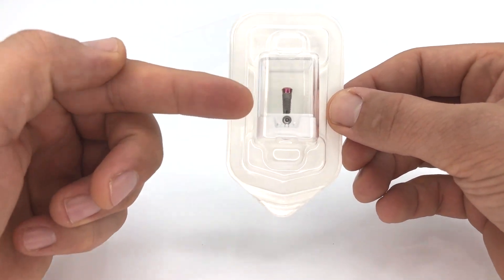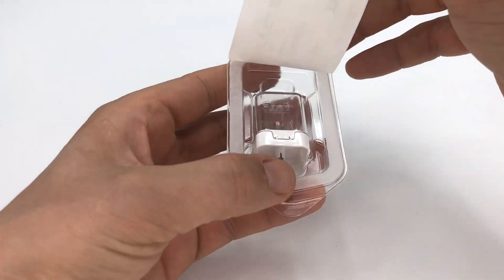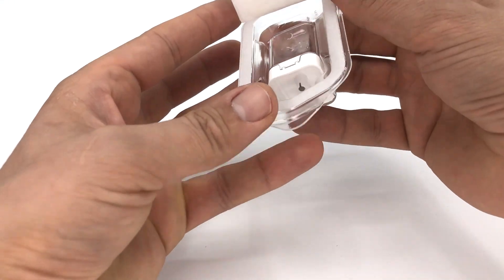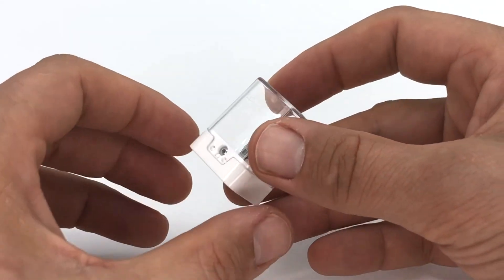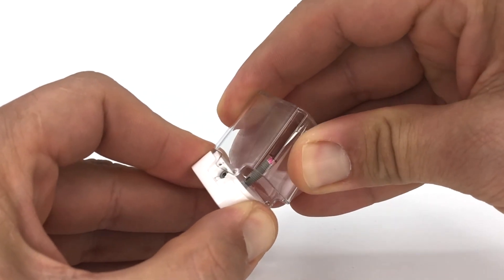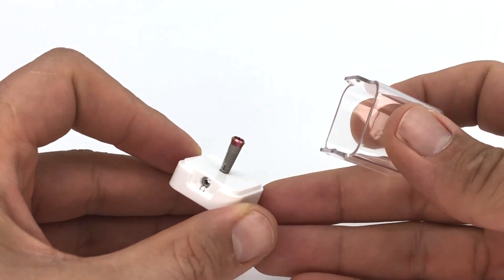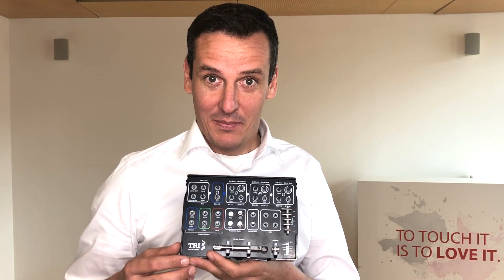The blister contains the tripod, cover screw, and implant. Open the blister and simply drop the tripod onto the surgical tray. Put your fingers on the right and left side of the base and open the lid carefully. Now you are ready to pick up the implant.